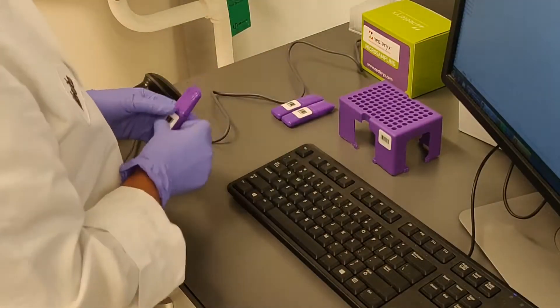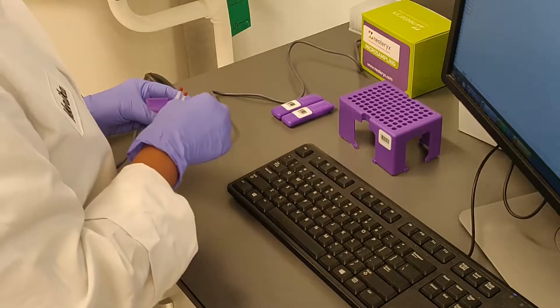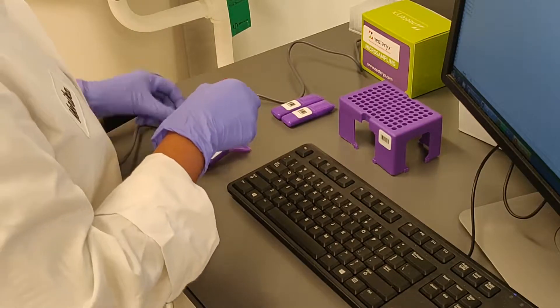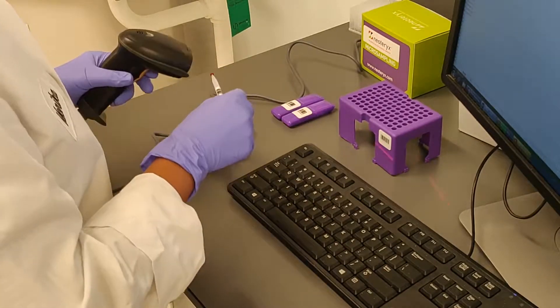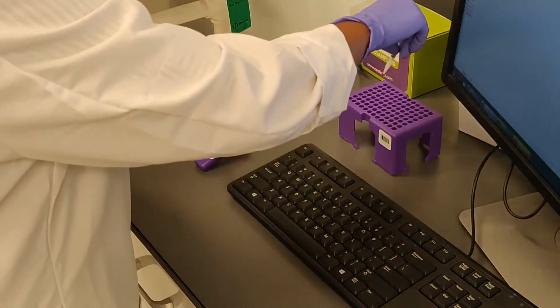The Mitra cartridges come equipped with trackable barcodes, making it easy to keep everything organized with less data entry, and get the information you need when you depend on it.